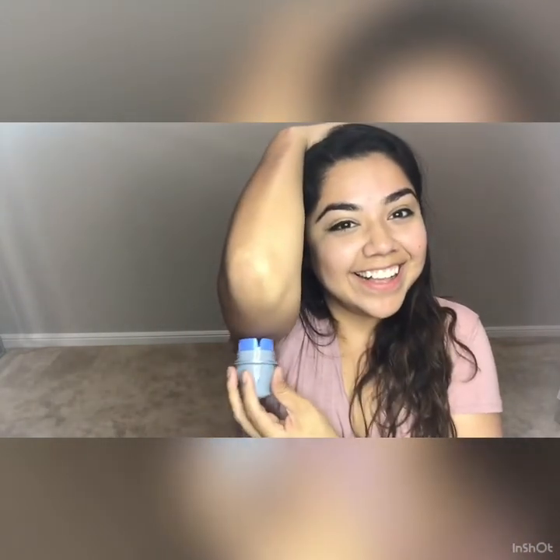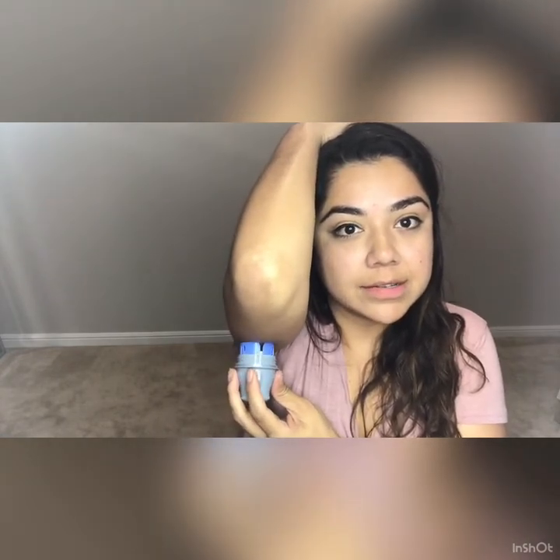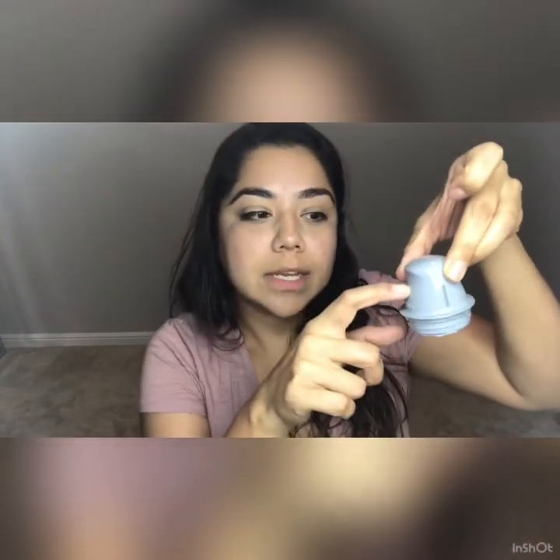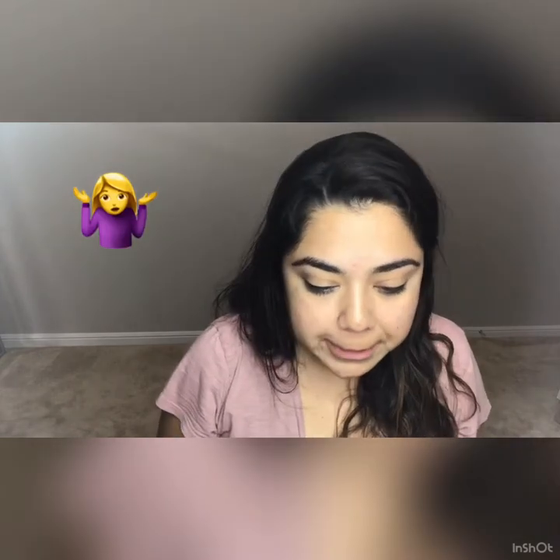I'm always nervous even though it doesn't hurt. One, two — there it goes. I made a face but it didn't hurt. It's stuck on there — this is how big it is and it just stays there. You scan it with your phone using the app. The needle is way down inside and a little tube stays in there, kind of like a little IV.